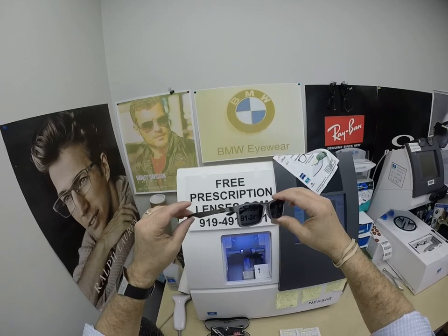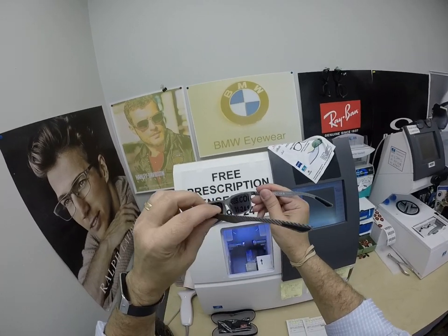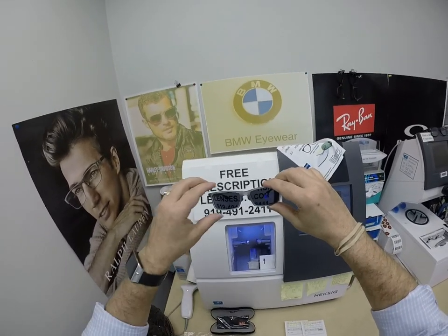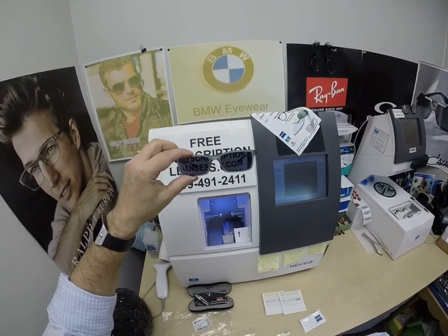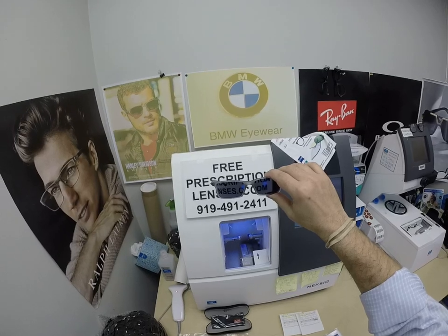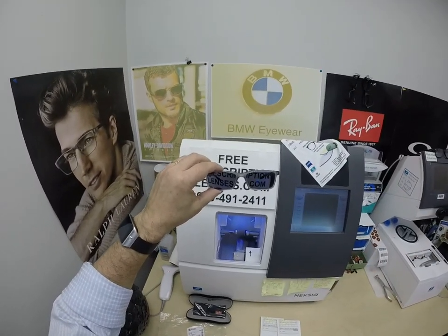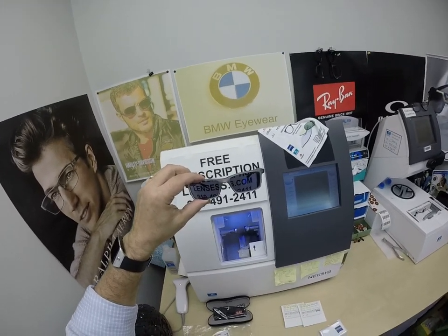The other thing about photochromic lenses — they're temperature sensitive, meaning they will get darker when it's 85 degrees and below than they will when it's 95 and above. Nobody or nothing works 100% when it's 100 degrees outside; we all work much better when it cools off. The Photofusion Extra Gray are designed for extra active people who spend extra amounts of time outside. If you live in a very hot climate and you just want the darkest lens possible, go with the Photofusion Extra Gray.